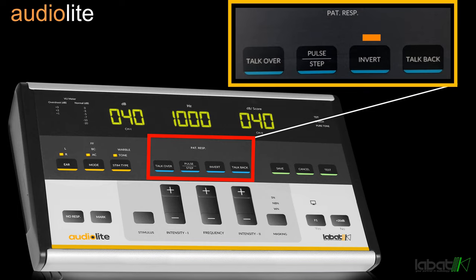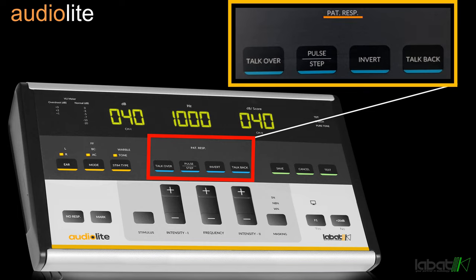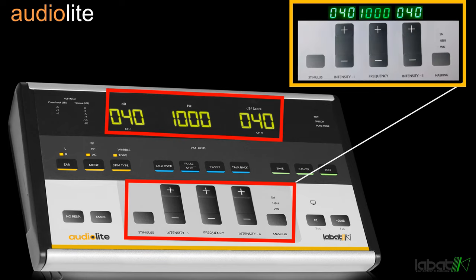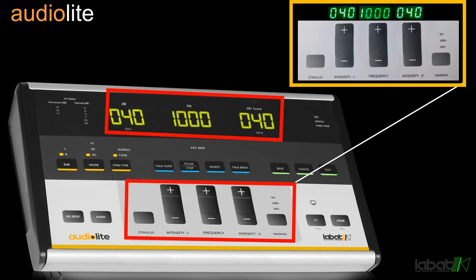Invert is used for converting stimulus from non-continuous to continuous mode. Talk Back is used for speech audiometry. Patient Response Indicator is used to get indication from the patient response switch. Intensity 1 is used to increase or decrease the intensity of channel 1.